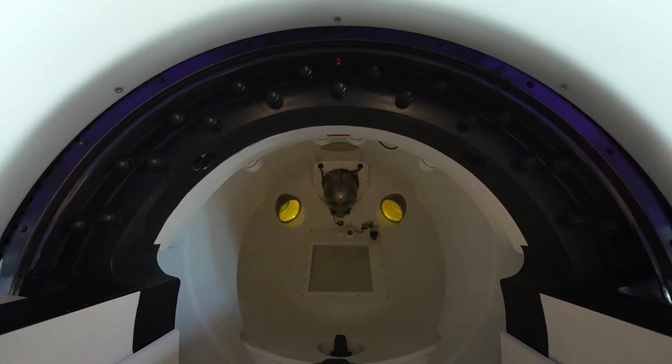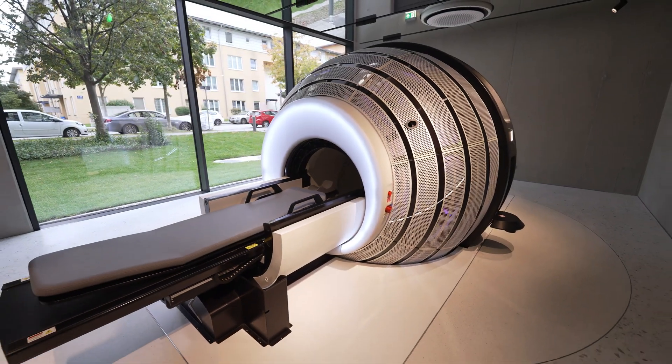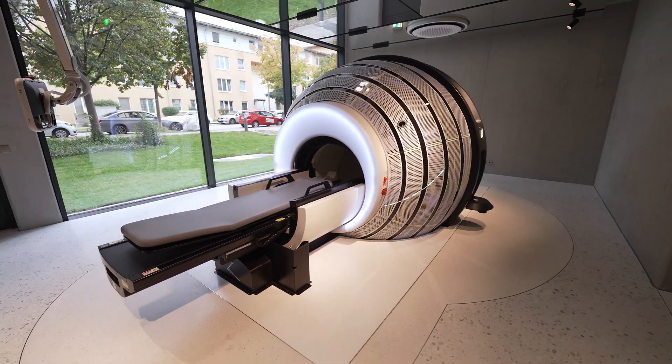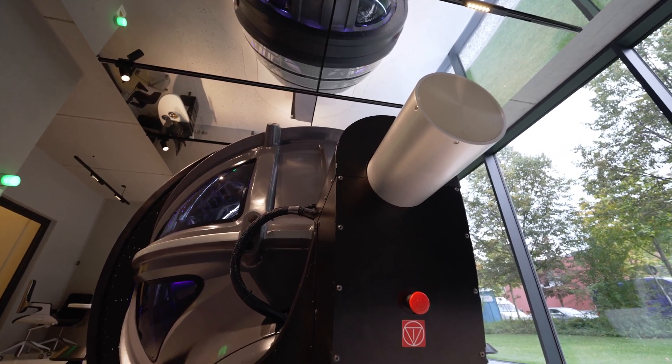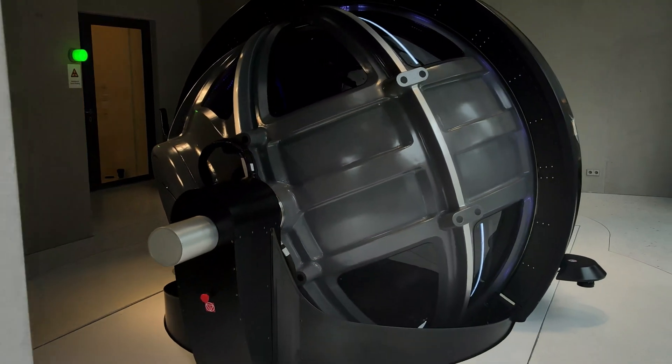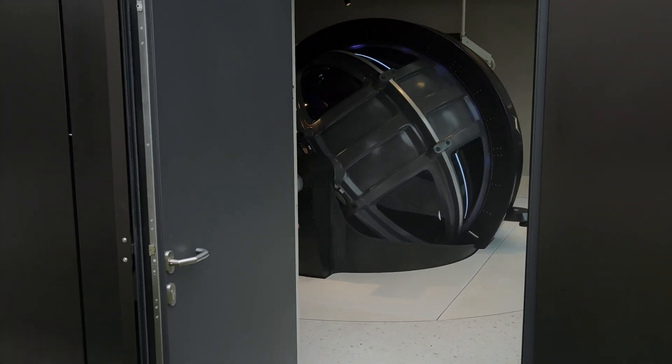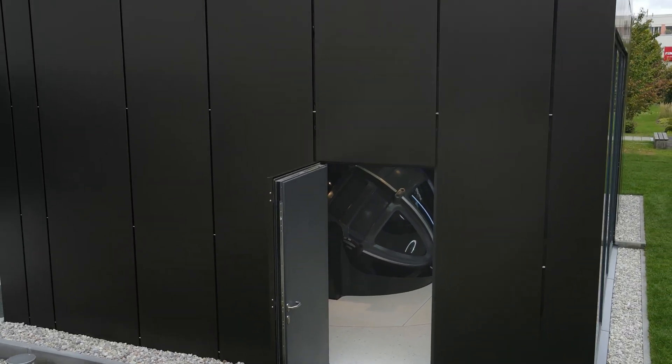Twenty years ago, for radiosurgery, only small deep-seated tumors were used as a positive treatment indication. Nowadays, even bigger tumors can be treated because technology is moving forward, and I'm sure that these high-precision radiation treatments will play a greater and greater role in the near future.